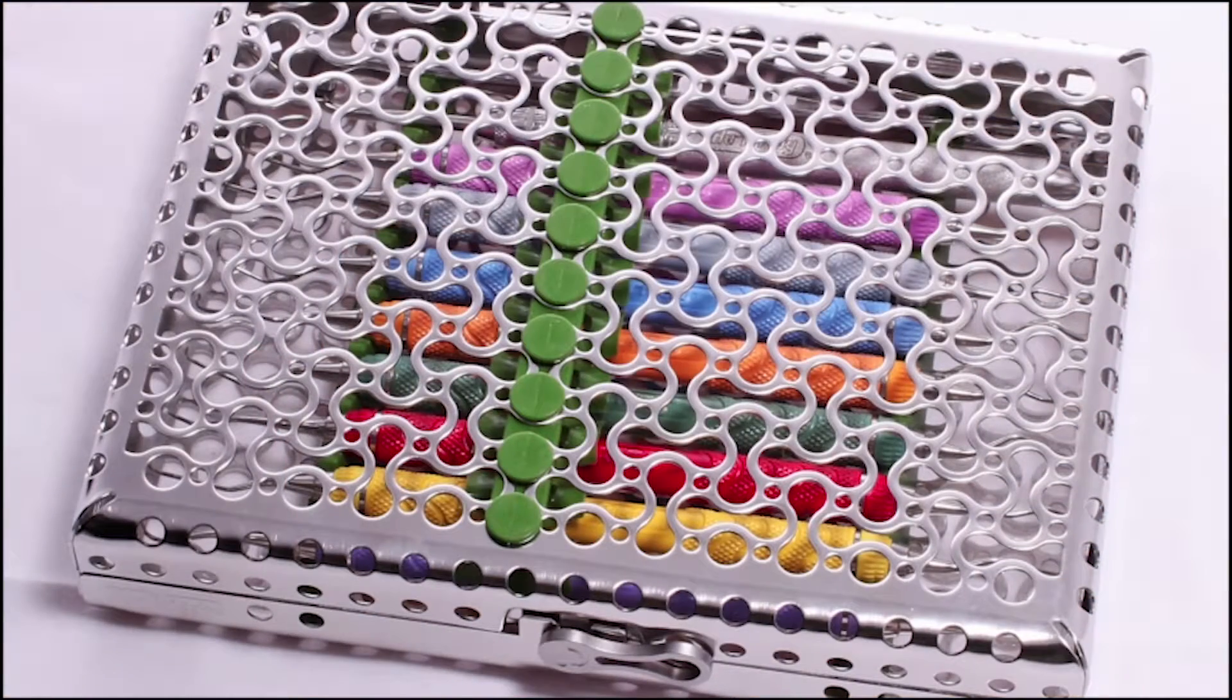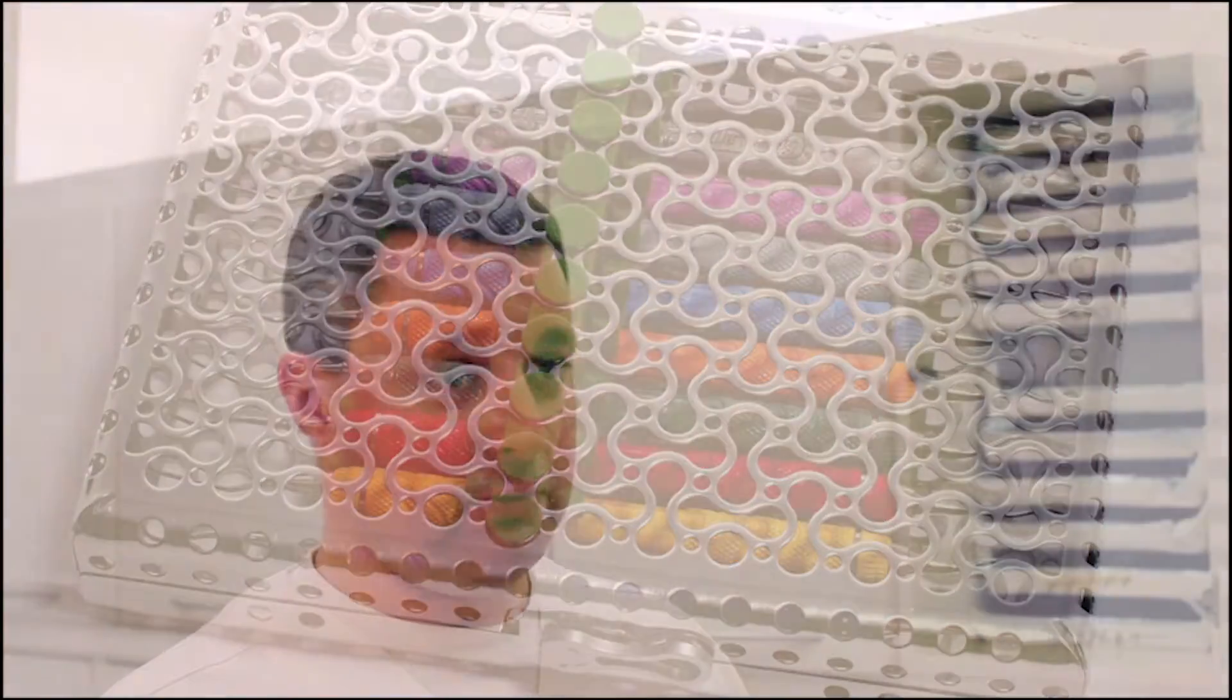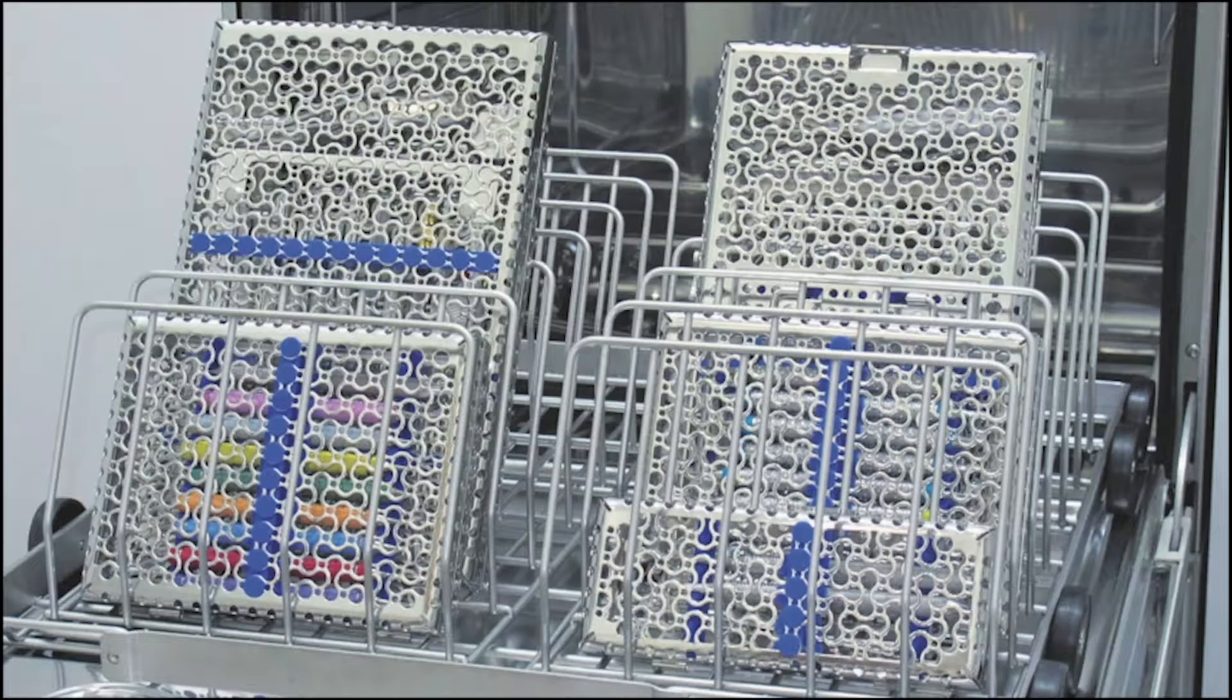One of the nice things about the tray system as opposed to other tray systems is it has a very good balance between being perforated enough to allow full cleaning of the instruments and letting good water flow through in the ultrasonic machine and in the washer disinfector.